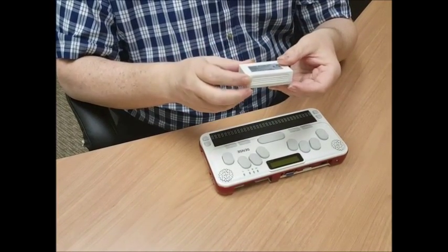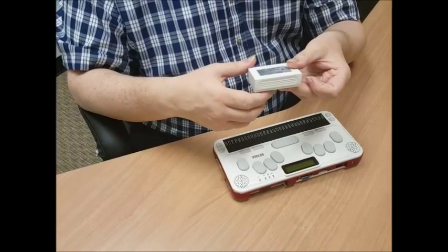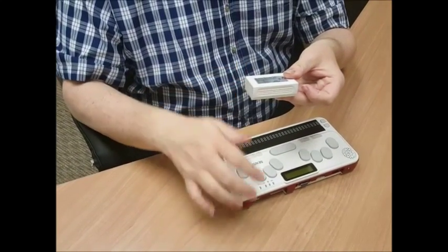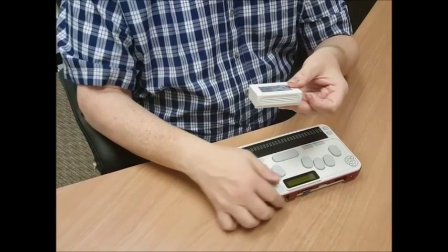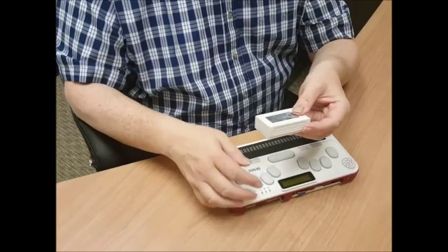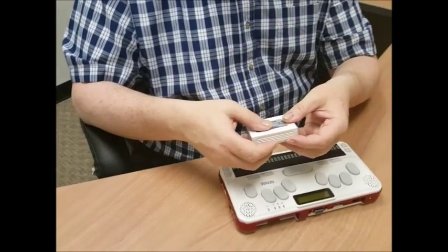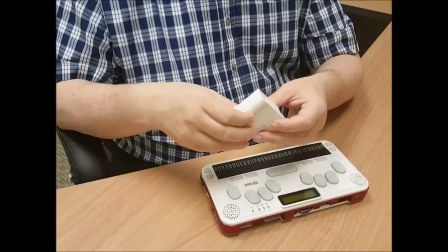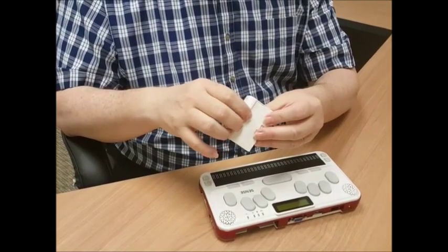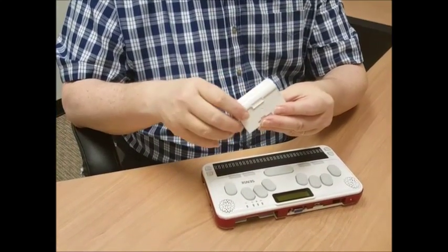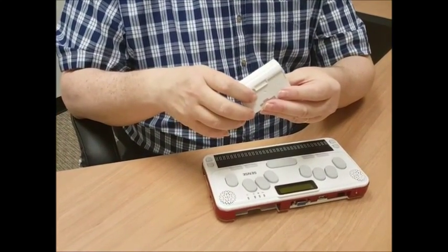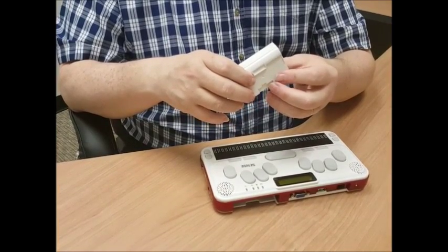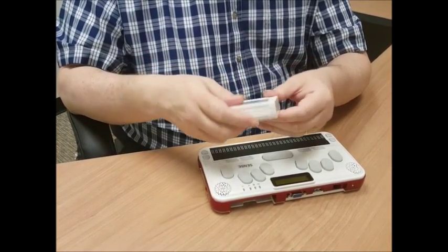And if you can see this, you'll see that the back of the battery looks a bit like the back of the BrailleSense, and it becomes flush with the unit. So also on the underside of the battery, there's a little indentation on the back edge. And that would be so that if you had to take the battery out, you can get to it with your fingers.